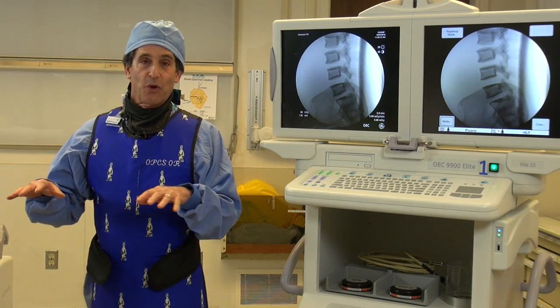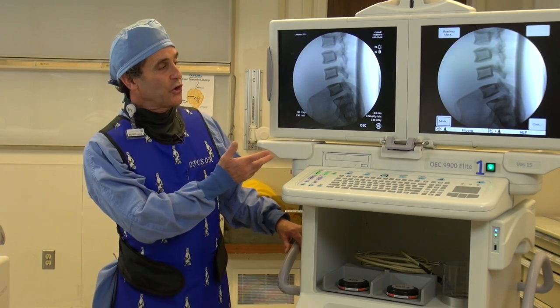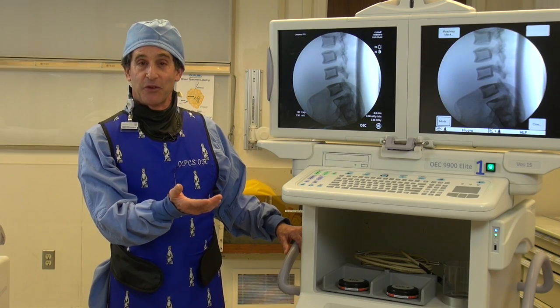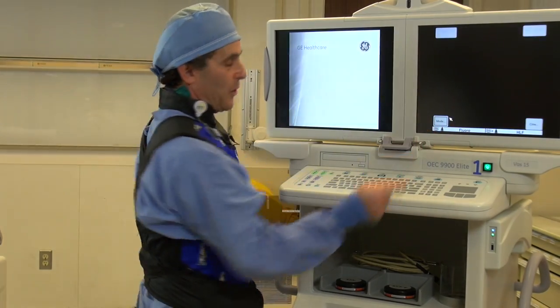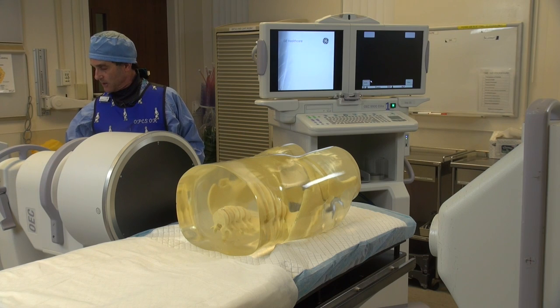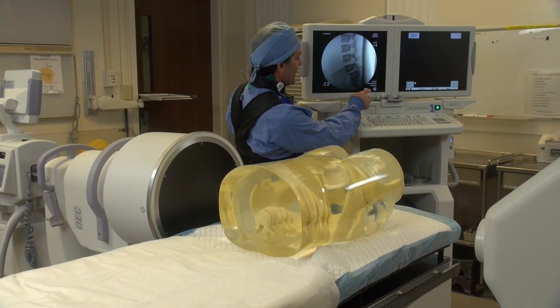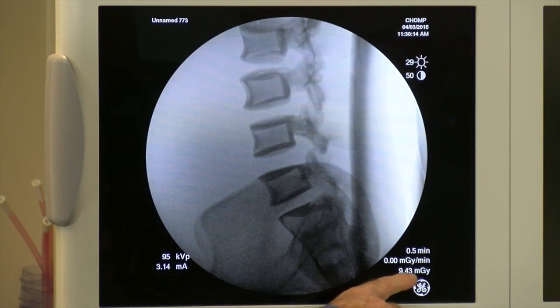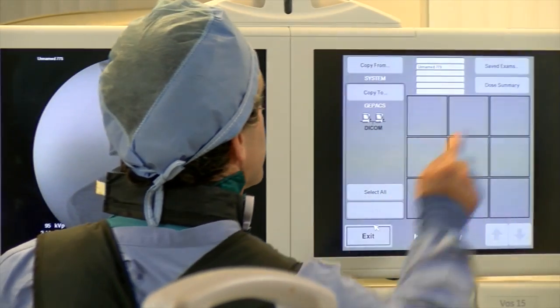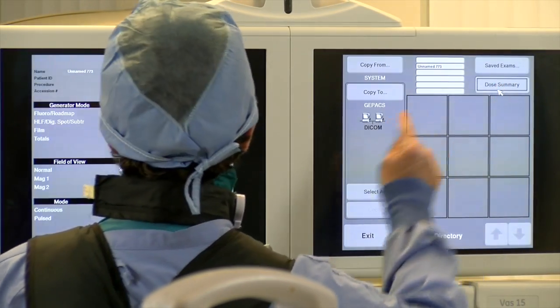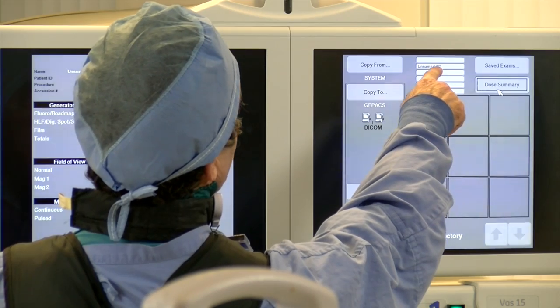So now we're going to redo this whole thing and make a 30-second exposure for each one, so we can show you the difference in the doses after 30 seconds of each. I'm going to start this whole thing over again so that we don't have any dose going at all, and make sure I'm off of low-dose so everything is on regular. Getting my timer going — the dose right now is 9.43 milligray. I'll go ahead and go into the image directory and save it. This one I forgot to put a name on, so this is going to be unnamed 773.